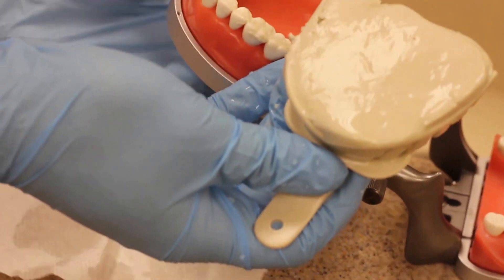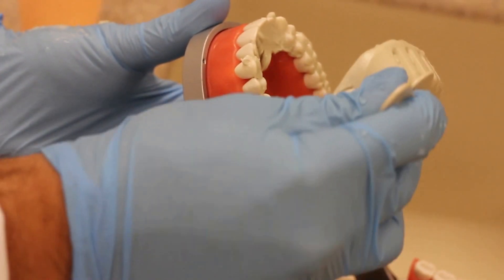And obviously this isn't a patient's mouth but what I like to do is retract the cheek, have it sideways, rotate it in.